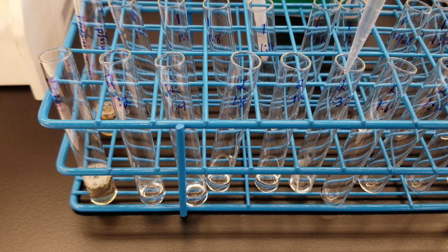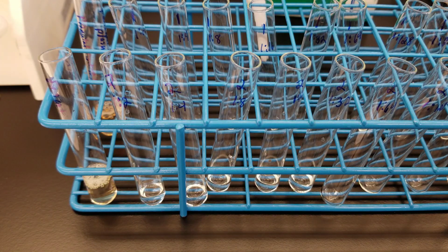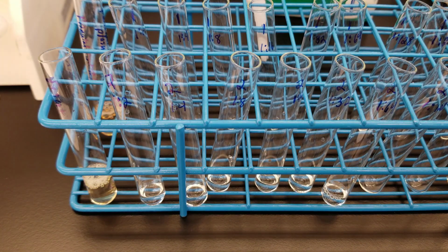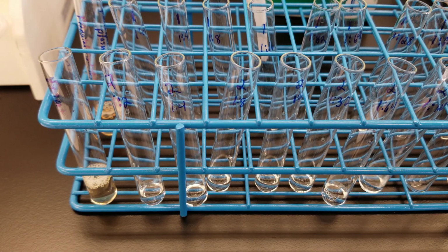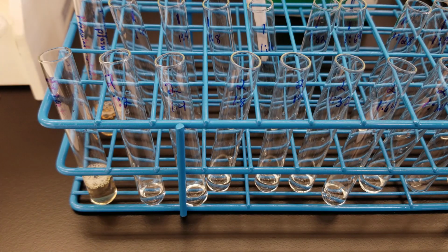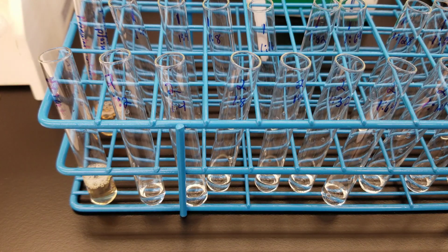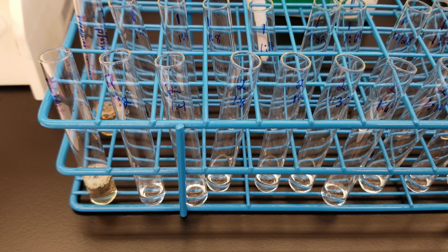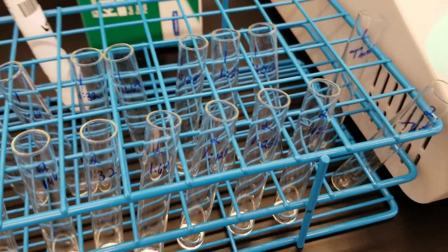So we will be looking at what reactions we get from challenging each of these diluted tubes' contents against the reagent cell. All right, so I'm going to do this with both. The reason that we have the first visit also is because that's our baseline. By the way, I do have throwaway tubes, they're set aside.